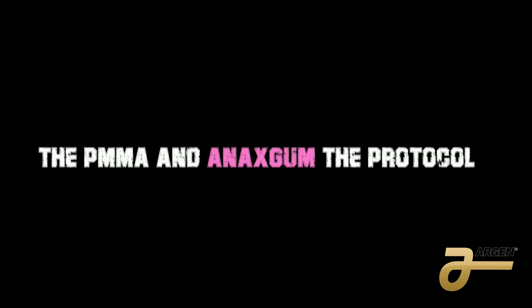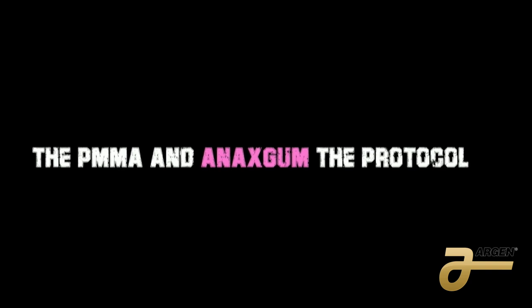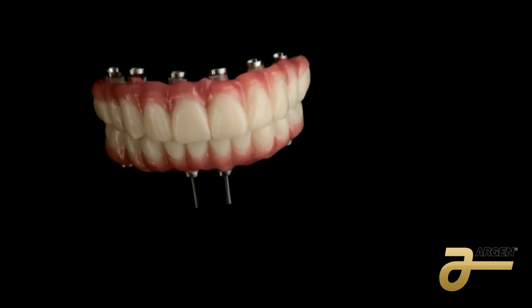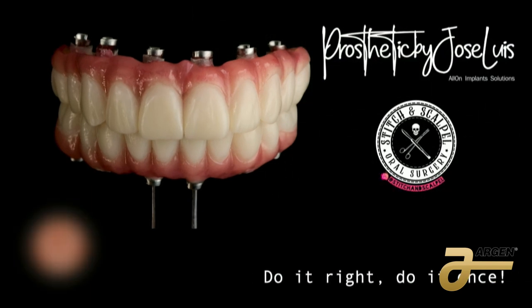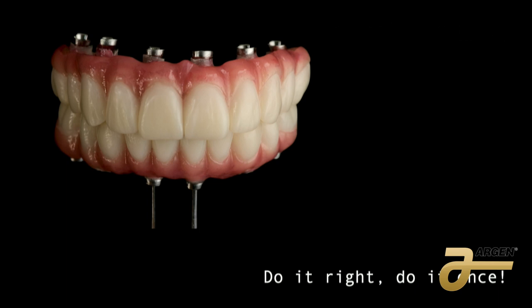This is a sample of one case — it has TI bases as requested by the clinician, and you're going to see the outcome. Some people told me, 'Why do you do it so pretty — the patient is not going to come back?' But we have to think that the patient has already paid for something good. Why give them something bad? I say: do it right, do it once, and try to copy the final. That's going to make it easy to reproduce in any material you use for the final — in this case, zirconia.